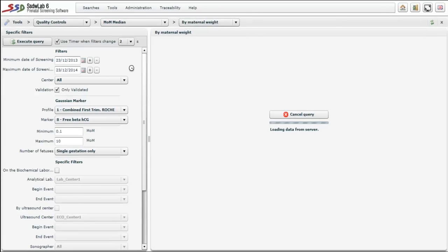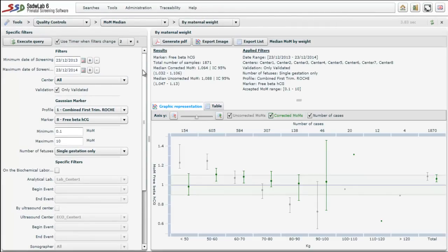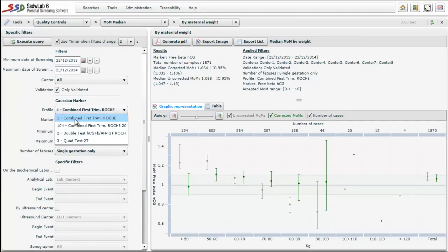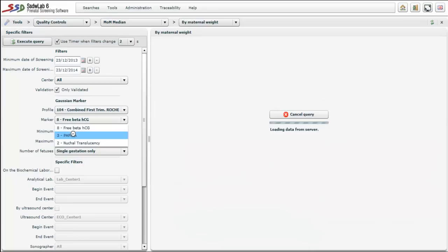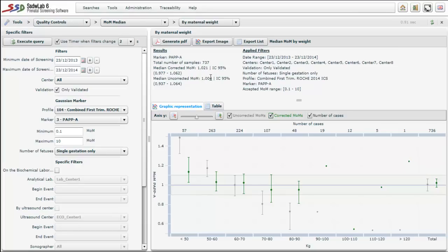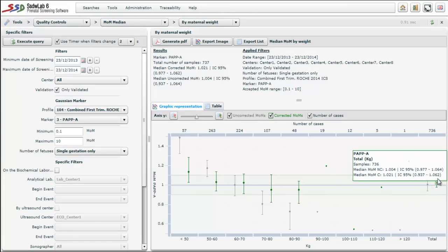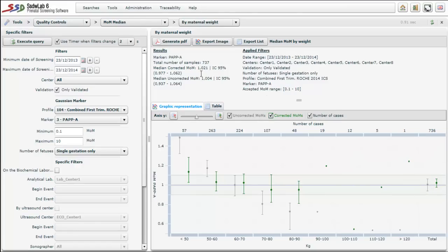The parameters include profile, marker, and others. We make our selection as in all previous cases and execute the query. The screen displays the median of multiples of the median for PAPP-A by different weight ranges. We can observe the corrected and uncorrected medians. The overall median corrected MoM is 1.021 and the median uncorrected MoM is 1.004 across all weight intervals. However, in the weight interval less than 50 kg, the median uncorrected MoM is outside the limits — we are overestimating.